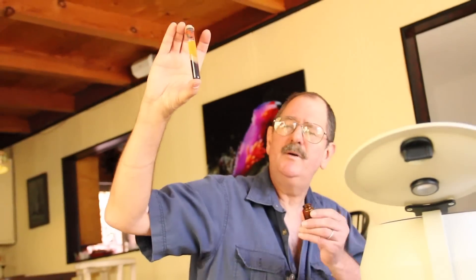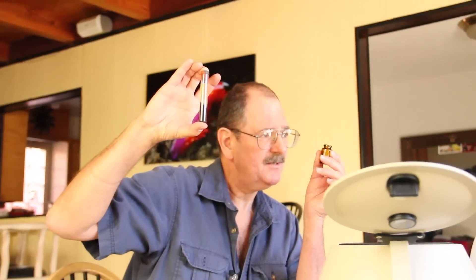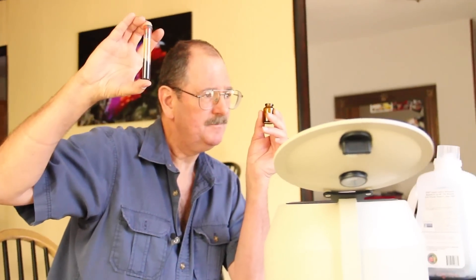Remember, it's live serum and it spoils. Now I only use drops once a day, so I don't have to put very much serum in each bottle. It turns out it's going to be about a half teaspoon of serum per bottle. Each blood tube gives me two bottles of eye drops.